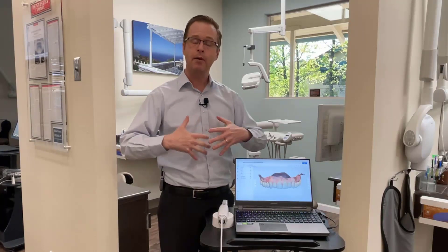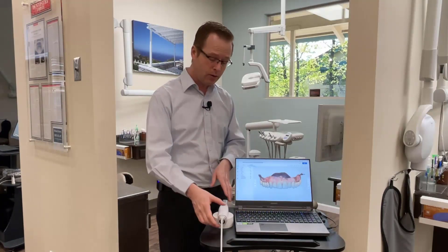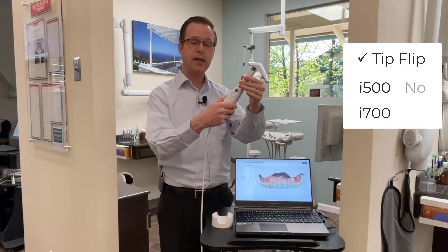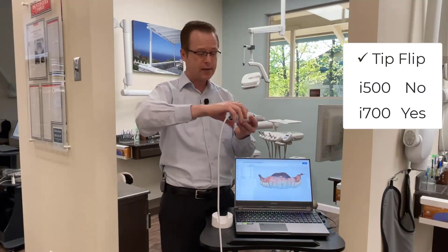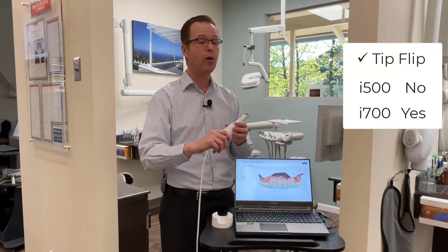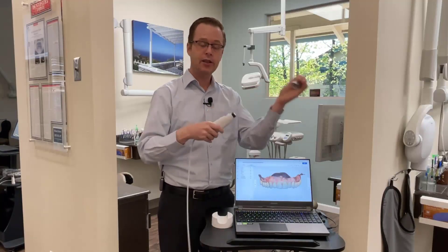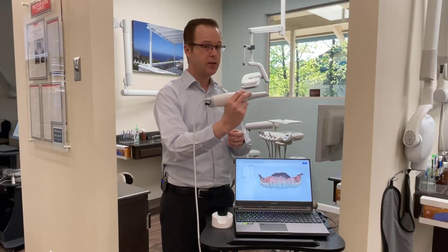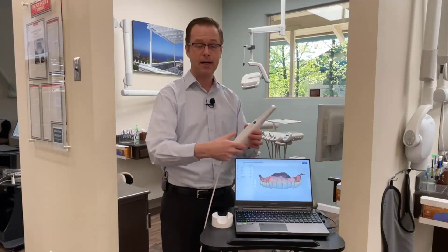The second I thought about it, I asked: can I plug this directly into the USB-C cable? And the answer is absolutely yes. On top of that, for users of other scanners on the market like me in my practice, I have several scanners that allow you to easily scan the maxilla by flipping and turning the tip around. For i500 users, this might be a little different since you're used to turning the scanner wand over. But I find that a really important feature — you can just hold with your hand, scan the maxilla, easily flip the tip over with the same finger grip, so it doesn't require additional muscle memory when using the buttons.